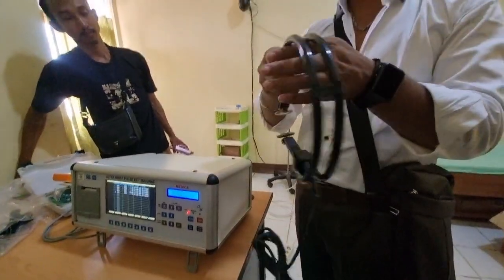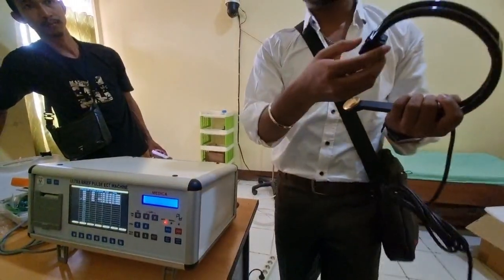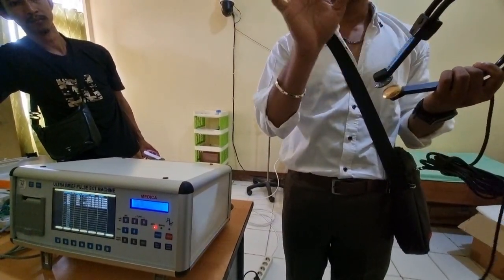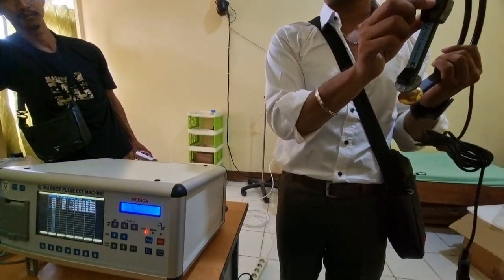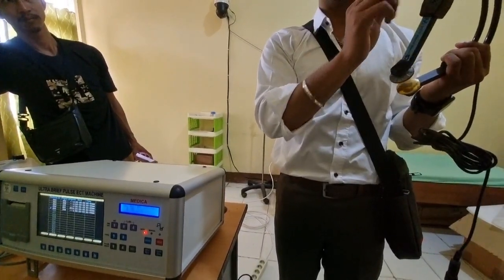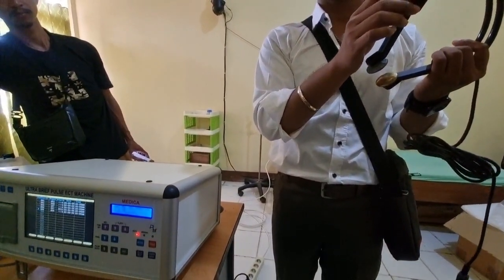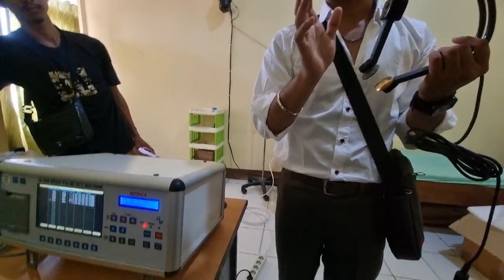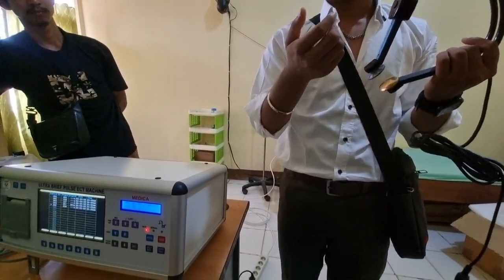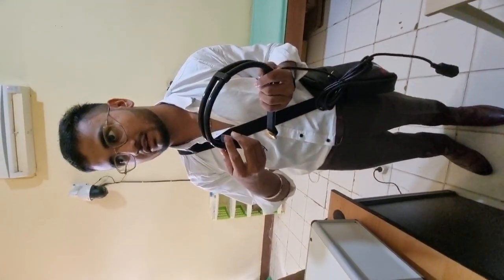That's why there are these buttons. If you selected 4 seconds of current there, then when you press this button, it will deliver the current for 4 seconds. And when you use it on manual mode, you have to change the mode. Then as long as the button is pressed, the current will flow continuously until you manually stop it. That is manual mode. Usually it is not used anywhere, but if a doctor has a special patient, he can put it on manual mode and give current manually according to his time and current value.